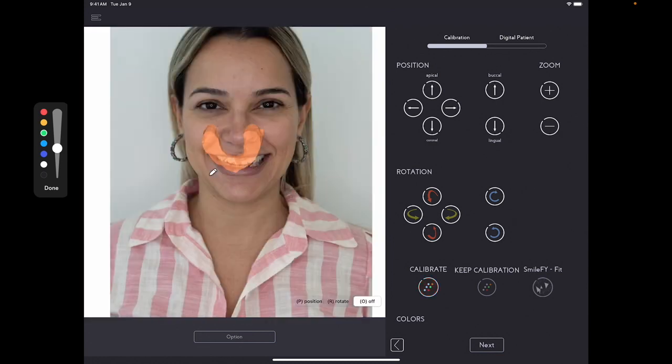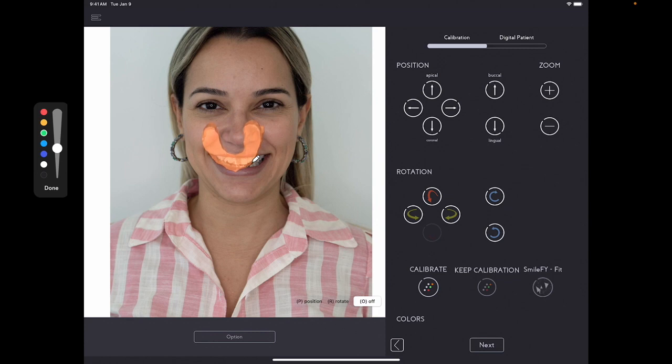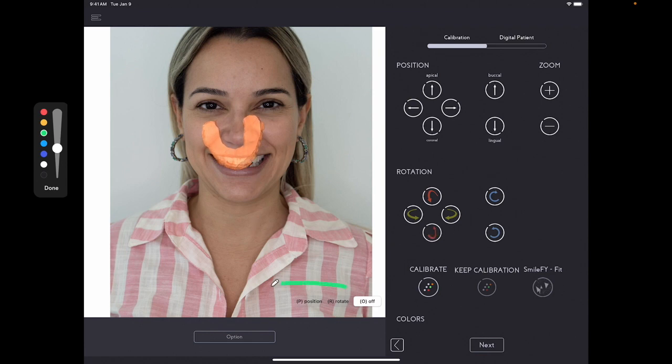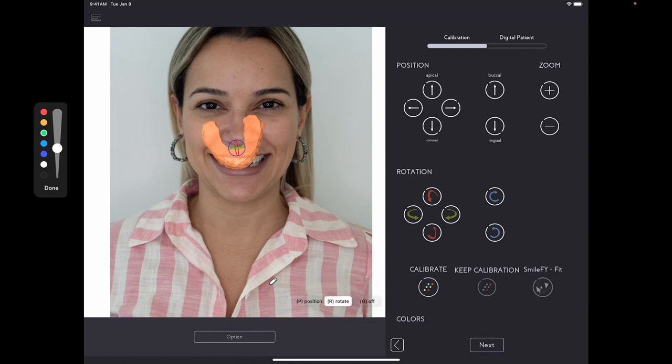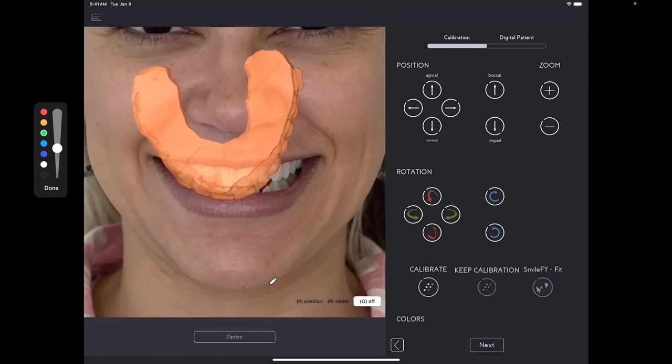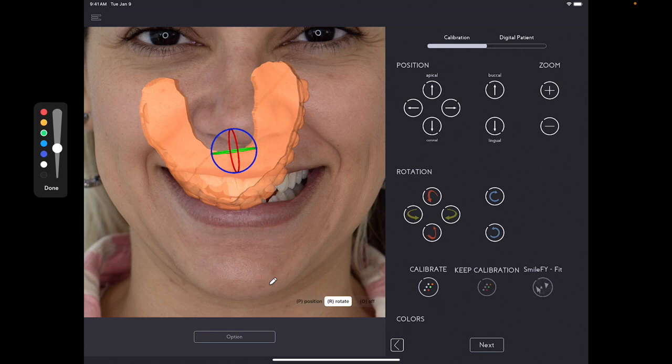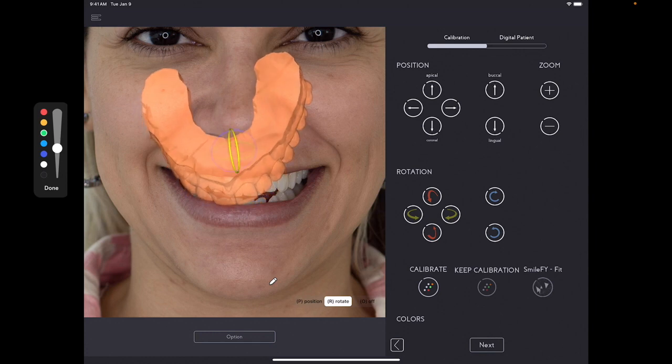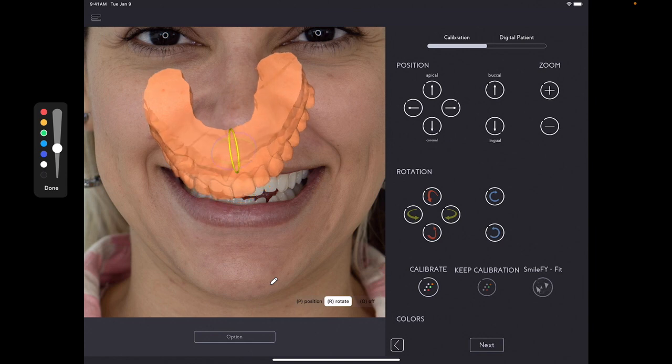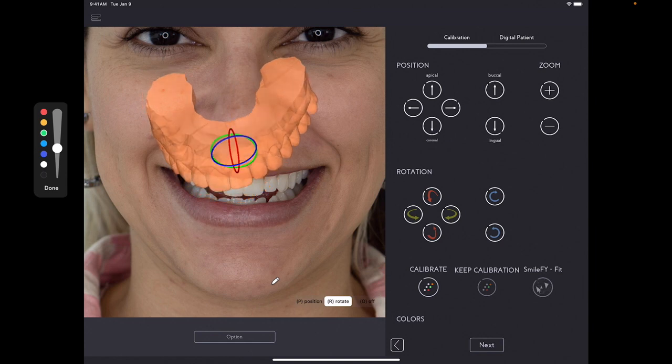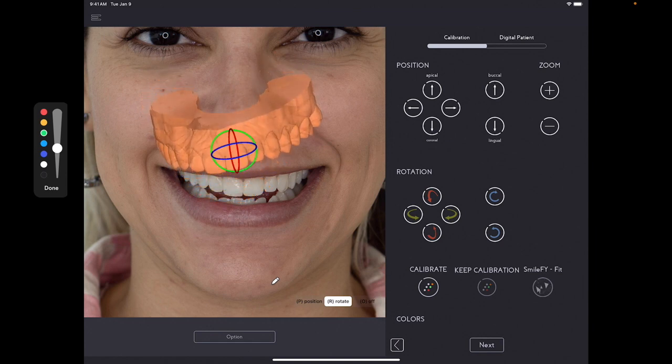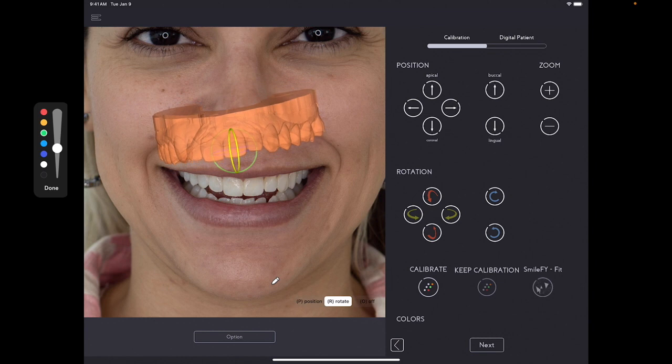And then if it continues like that, simply you can rotate, use the rotation buttons that you can see here. Another option is by using these commands here at the bottom. Let me zoom in a little bit. And then I click rotate. You press and hold onto any of these circles. And it will do the movement as you desire.